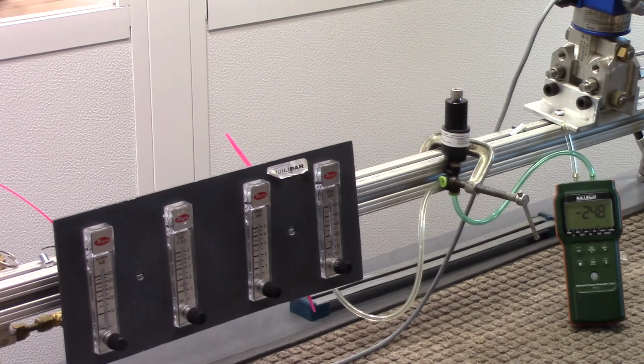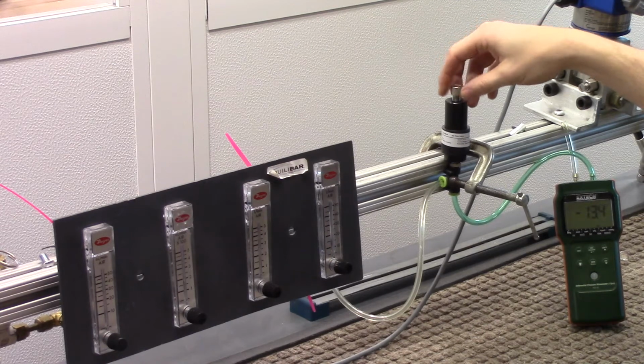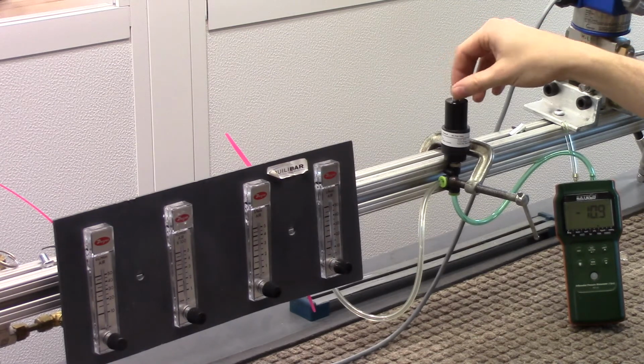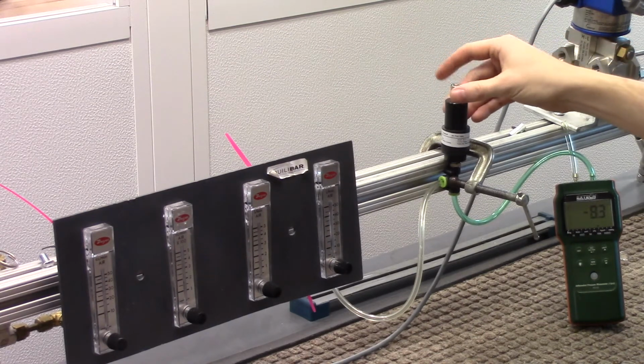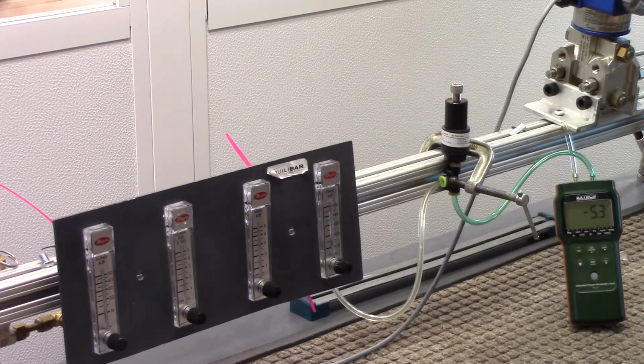So I'm now going to change the set point by adjusting this screw on top. This changes the set point of the valve. I'm going to go to a low set point here. Typical low PEEP pressure pilots are on the order of 5 millibar. So we'll get approximately in that range. Here we are. So we have 5.3, 5.4 millibar set points at 150 cc's a minute of flow.